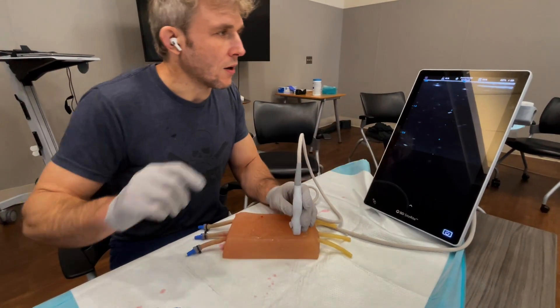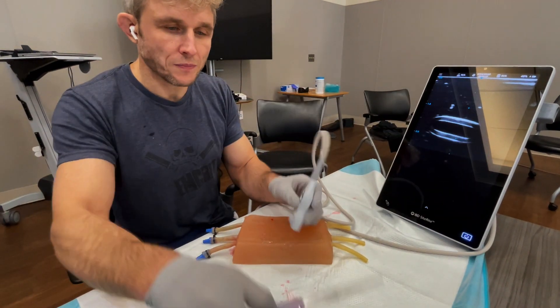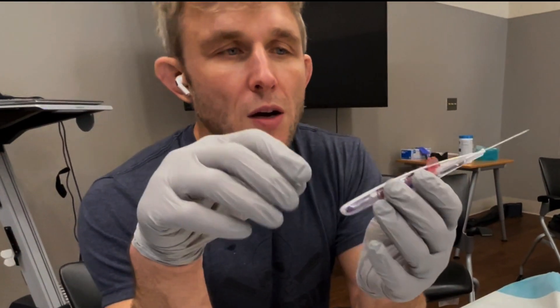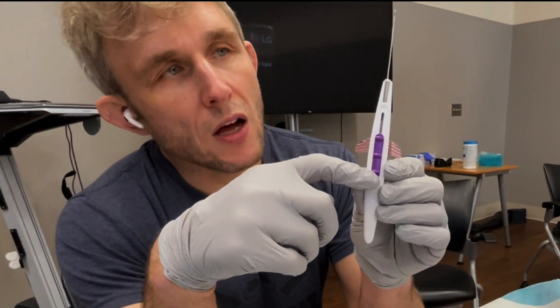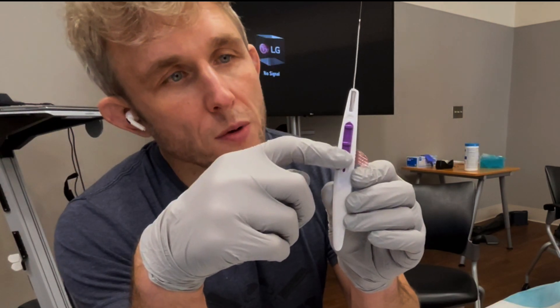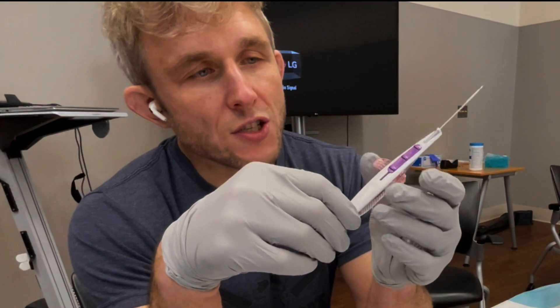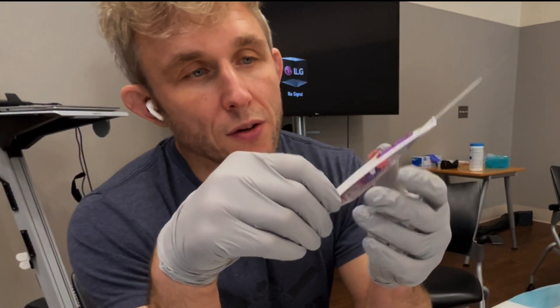What we have here is this model where we have our vessel. The kit has a couple of components: the purple slide in the middle progresses your wire, so you're going to advance your wire when you're ready to capture the vessel. The pink wings on the side progress your catheter forward once you're ready to insert it.